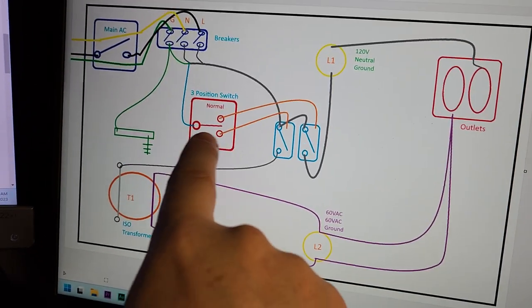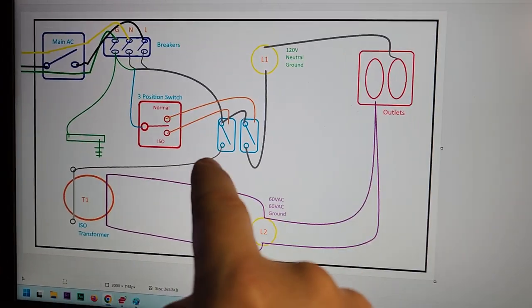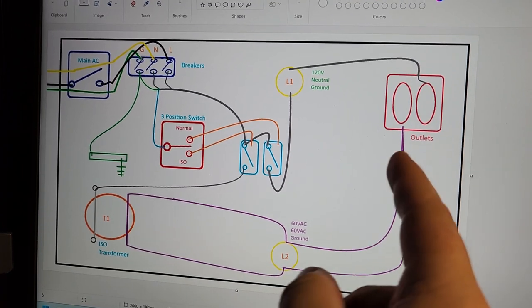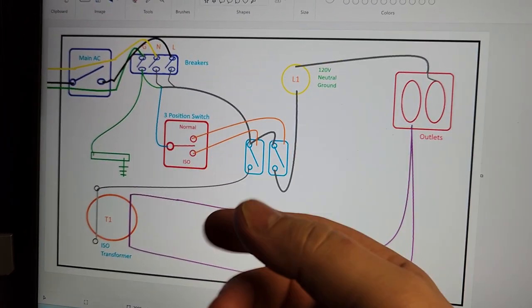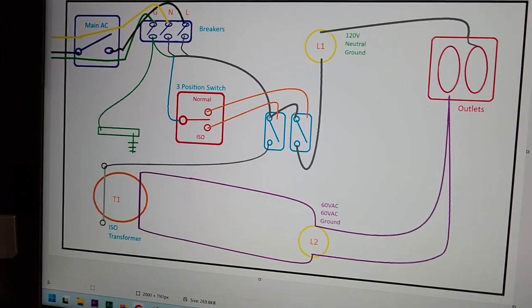This board will also give you different indicators for your electrical safety analyzer. If you're running isolated power, it's going to give you some sort of ground condition report. If it's connected to a GFCI, we can trip and test them — that's another thing we can do with this board.